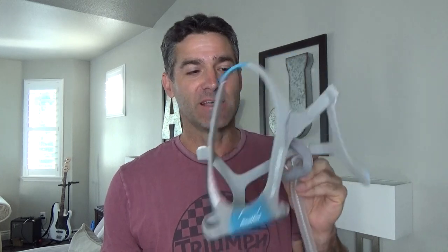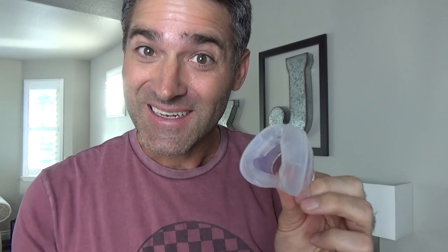Today we are going to be doing a review of the ResMed AirTouch N20 mask. It is a nasal mask, and in ResMed's coded language, AirTouch equals memory foam while AirFit equals silicone. Now if you haven't already, please check out my other video of the ResMed AirFit N20 — it is the silicone version of this mask. I like it a lot. What does the memory foam have to offer? We'll get into that here in just a bit.